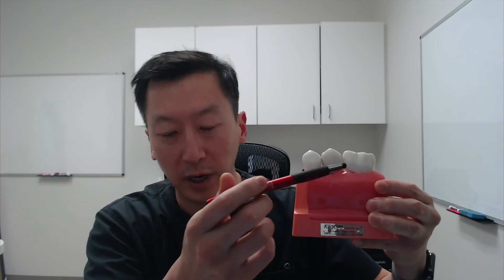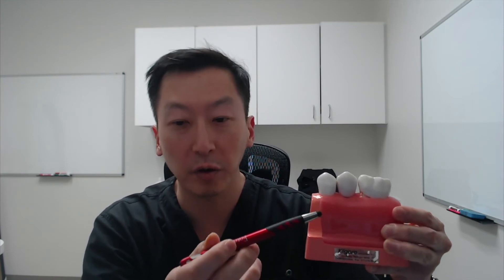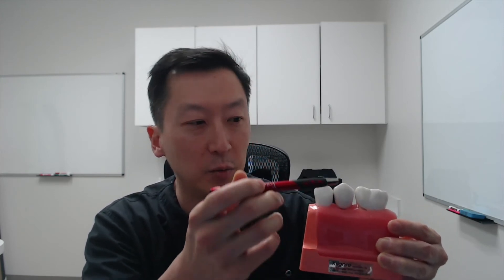Between the implant and the crown is the abutment piece. Patients will ask me, can you see the abutment? You can't see the abutment — just like in this model, you can't see the abutment. All you see is the crown. And that's the beauty of the dental implant. We're not going to see your titanium screw showing through your gums. We don't see the abutment piece — we just see the crown on top.